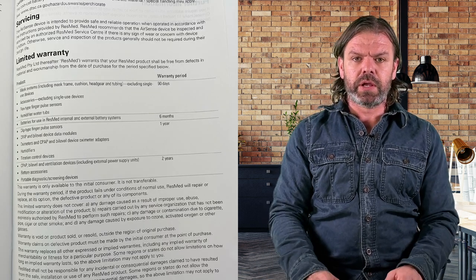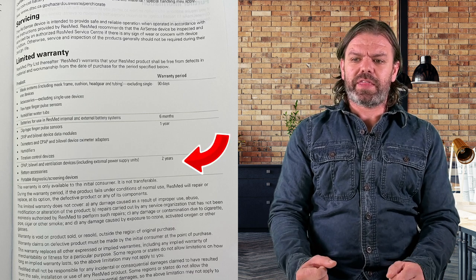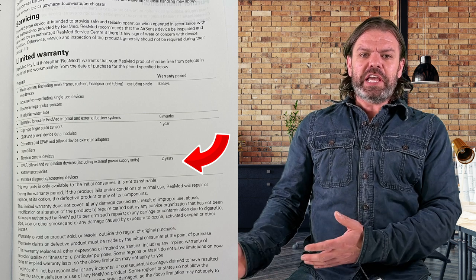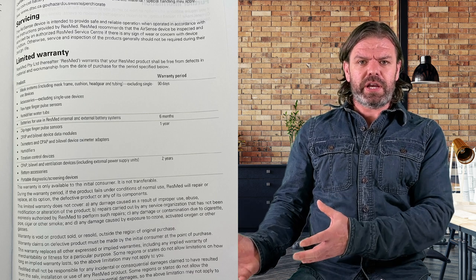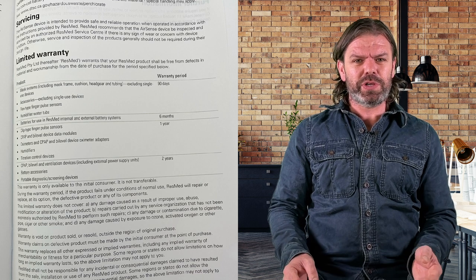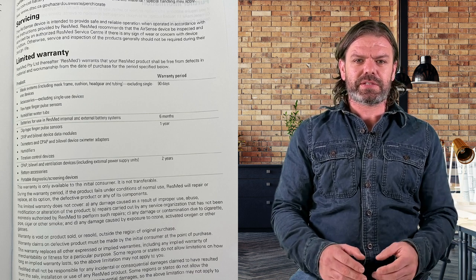Page 11 — the warranty. The warranties are two years, and that doesn't seem long enough to me. I know some Chinese manufacturers of CPAP machines that have five-year warranties. And then the high-end stuff like the Philips DreamStation 2 and the AirSense 11 — two years. If you're making the machines to last five years, then at least give people that five-year warranty.